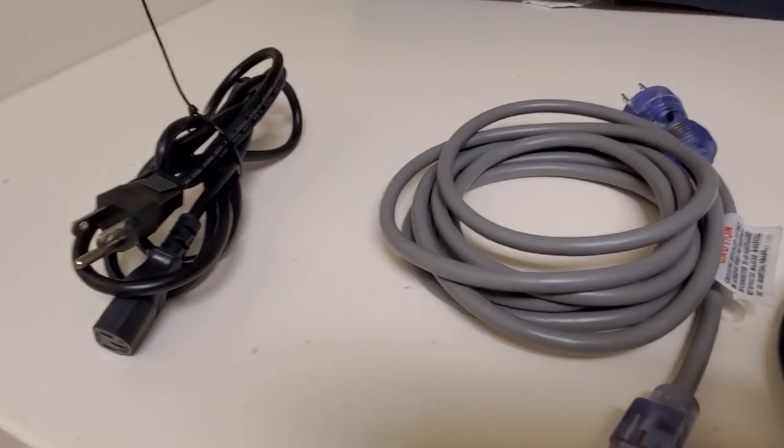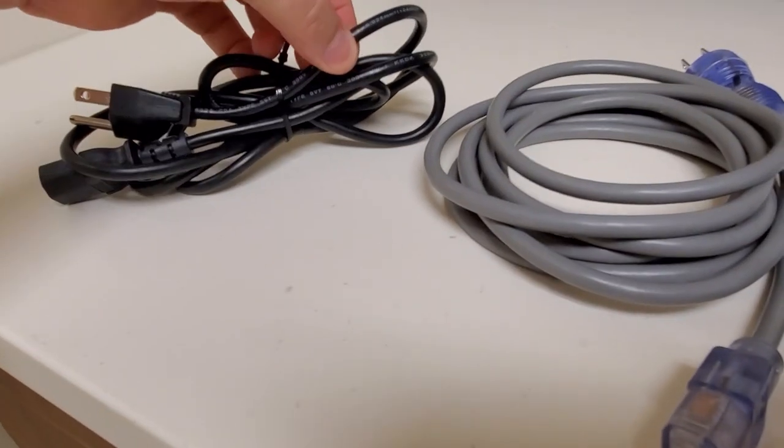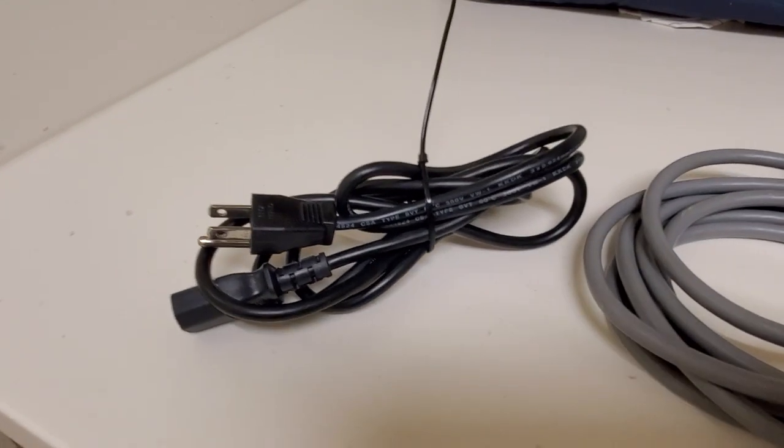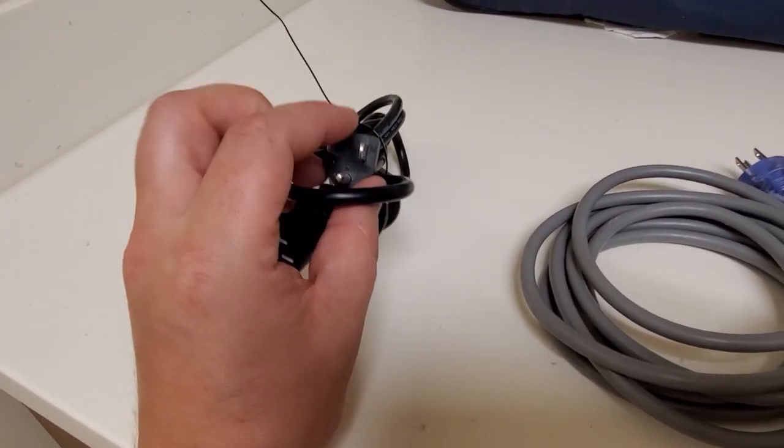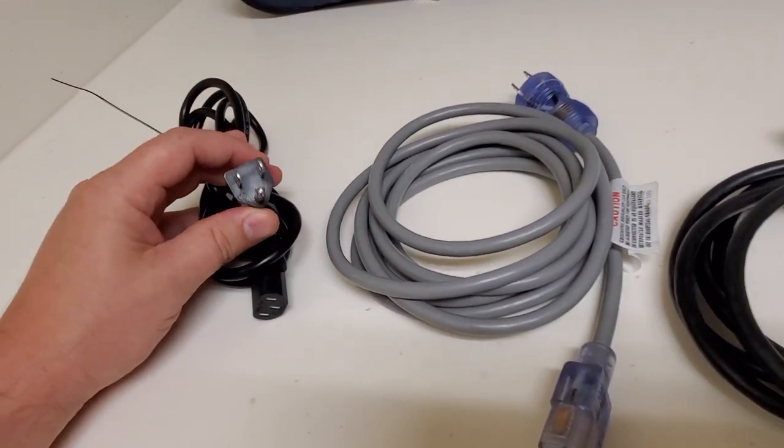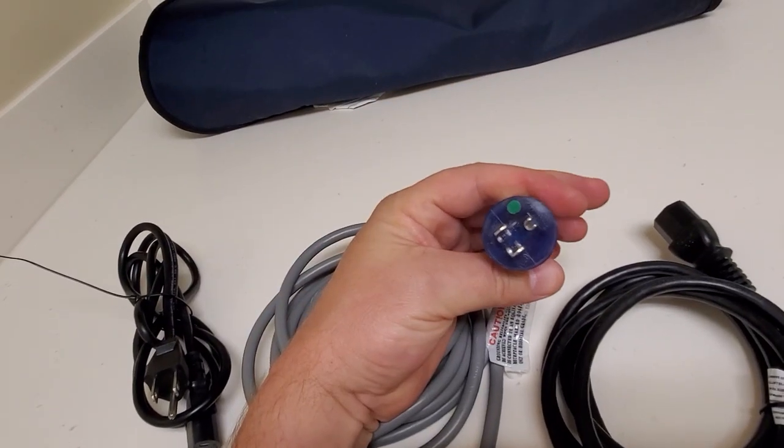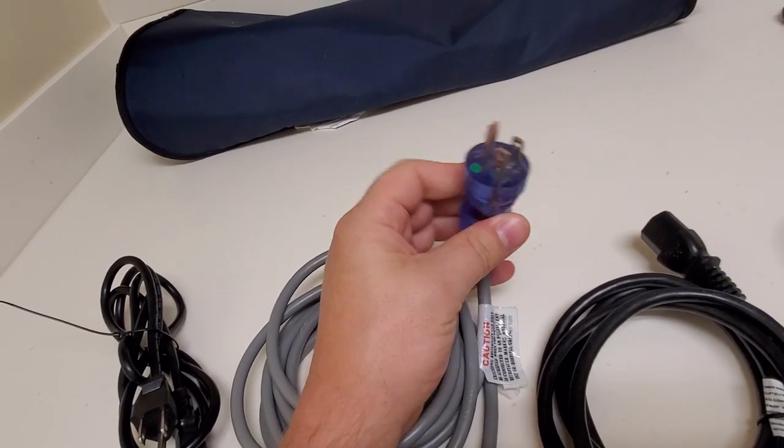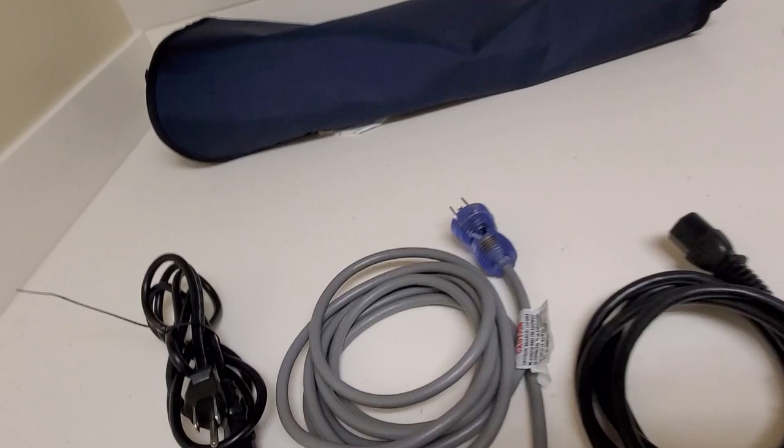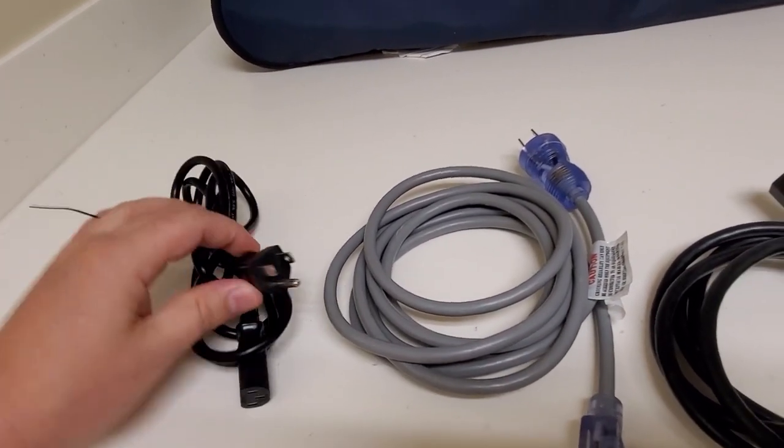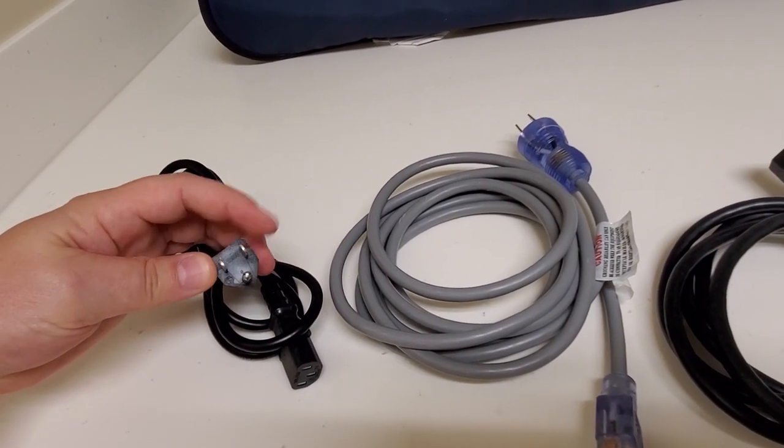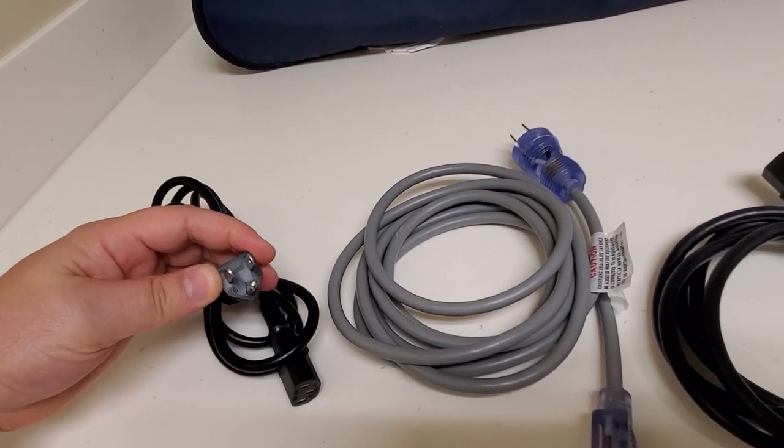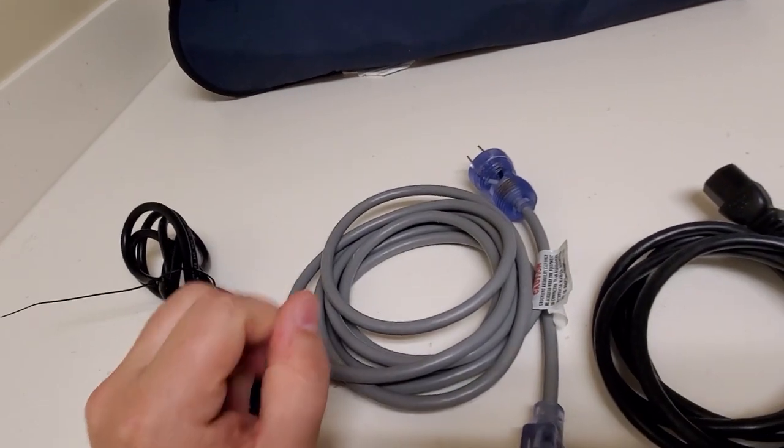First off, I got this little guy right here. Here, you can see based on the diameter, it's going to be a smaller gauge, probably a 20-24 gauge wire. It is a non-hospital grade plug. Now, a hospital grade plug, you can see, are much larger. See that green dot? That green dot certifies that it is an official hospital grade plug. No green dot on this guy. The reason it's larger is because it places the user's hand further from the pins when you're plugging and unplugging the item, which sometimes you'll be doing, possibly with your hands wet.